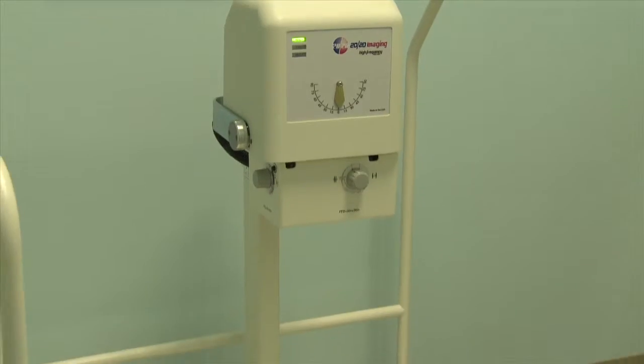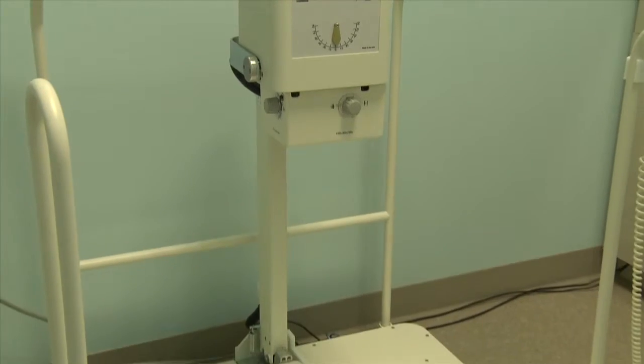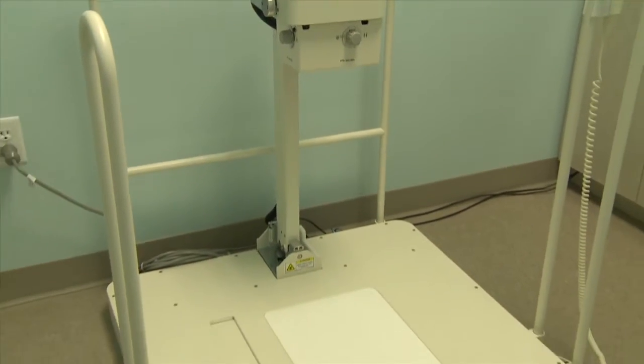Hi, I'm Blake Kerr-Steven. Welcome to 2020 Imaging. Today we're going to go through and show you how to operate the PXS-710D.